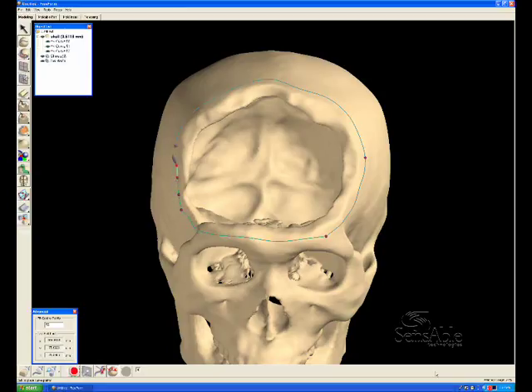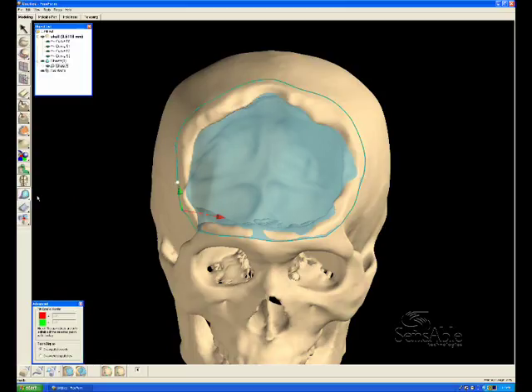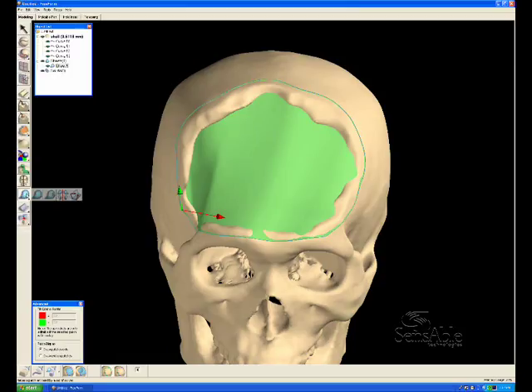There are 50 fit control points established to each one of these curves. That determines the precise fit of those curves to the surface of the clay.